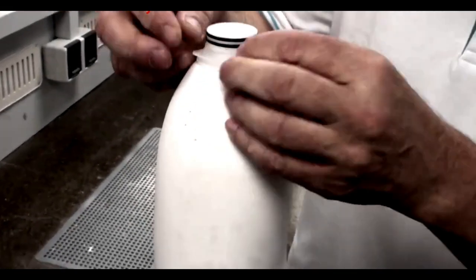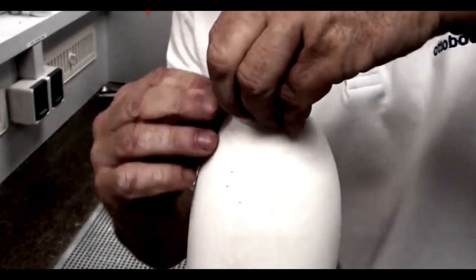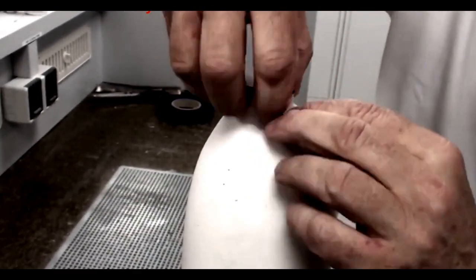Please take the silicone ring provided in the DVS kit and put it over the lamination dummy. This will create a nice seal for draping your plastic and make it easy to blow the check socket off the model.